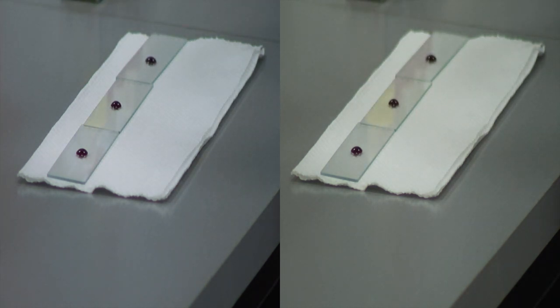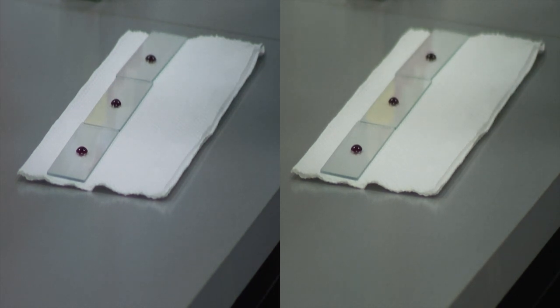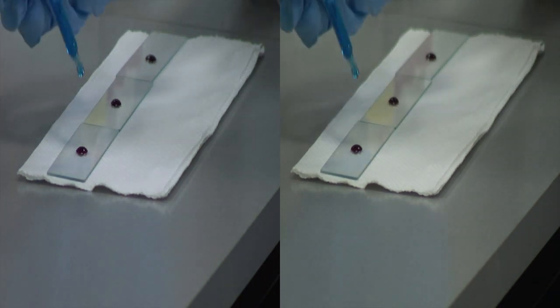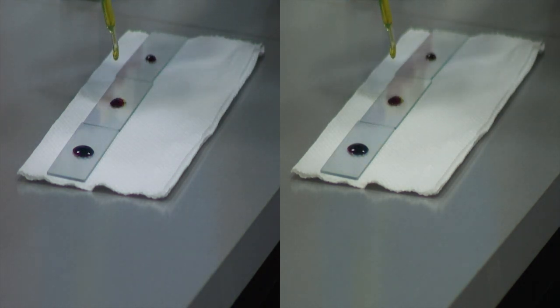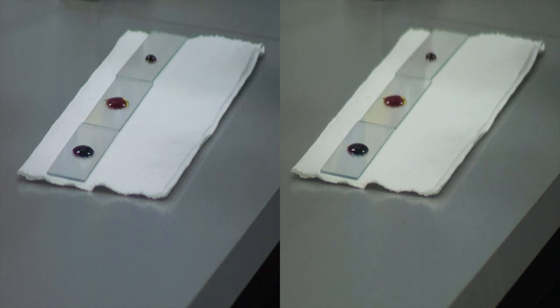A drop of anti-A reagent is added to the first slide. Anti-A is always blue. Anti-B is always yellow. And anti-A plus B is always a straw clear color.